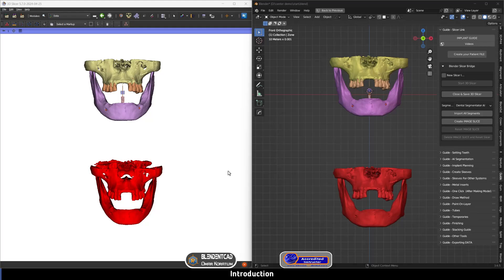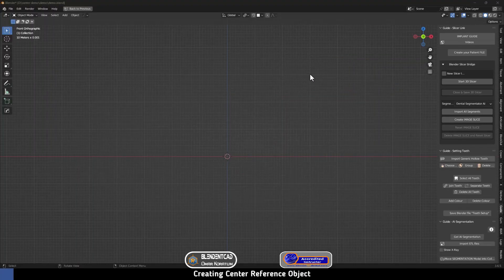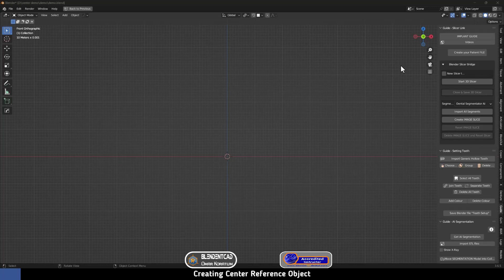Hello everyone. In this video I'm going to show you a faster way on how to change the location of the original radiograph in 3D Slicer, which I have colored in red to match with Blender for Dental center origin, for faster implant planning and guide designer module. Before embarking on implant planning, what I did is I created an object that represents the Blender for Dental center origin so that I would use it as a reference in 3D Slicer.